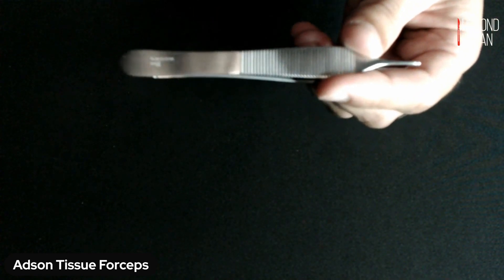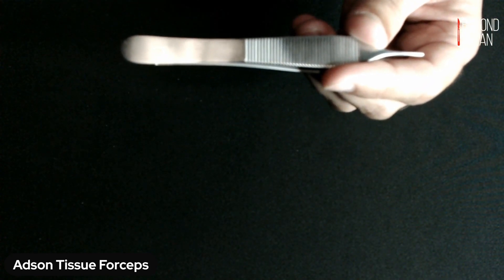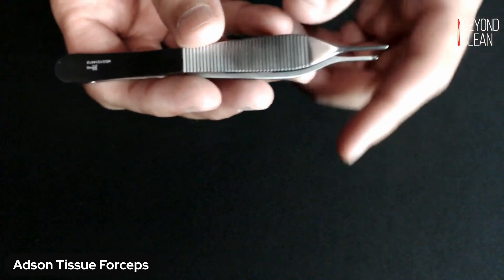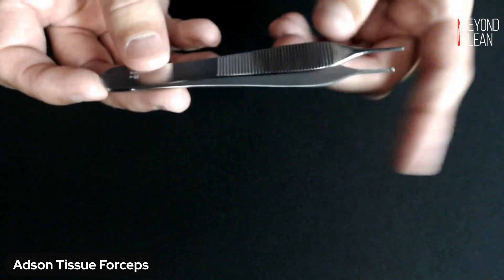In particular, this model is four and three quarter inches, and that's measuring the proximal end to the distal tip.